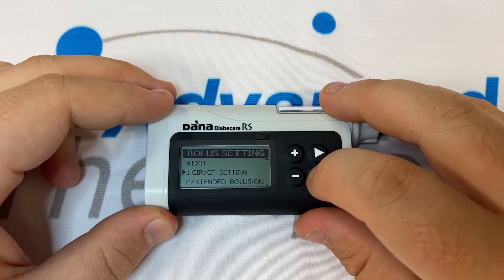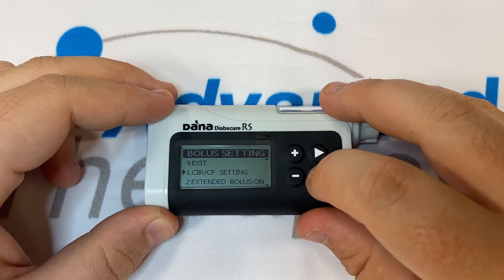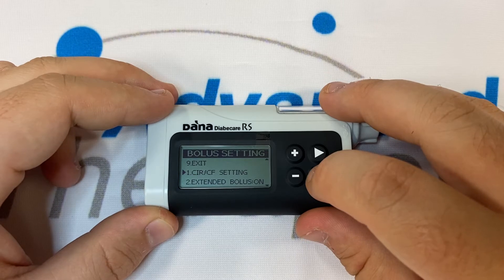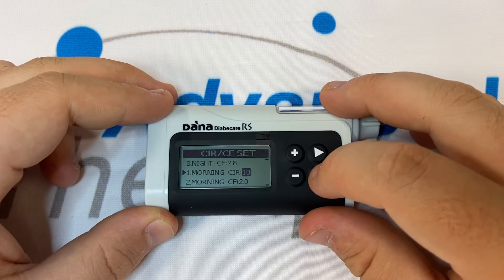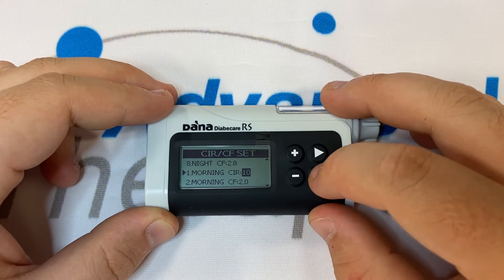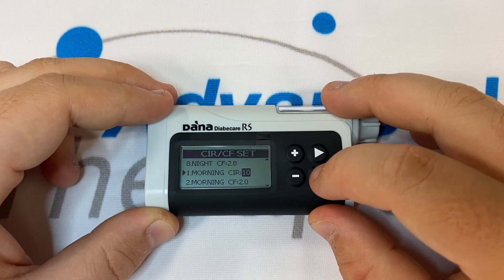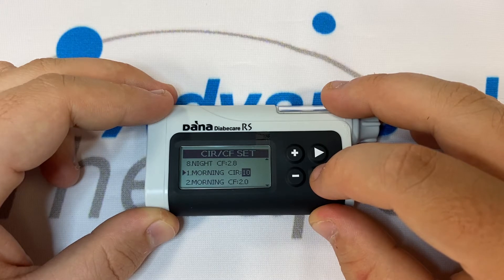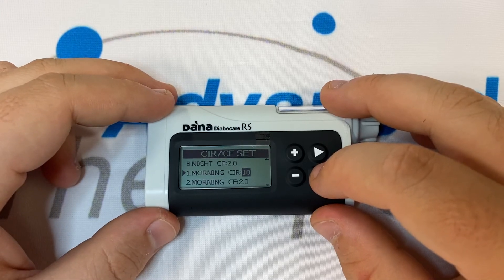Number one is CIR/CF — your carb to insulin ratio and correction factor. Press OK. Inside CIR/CF there are four different time slots with eight different data points to change. The time slots are labelled morning, afternoon, evening and night.